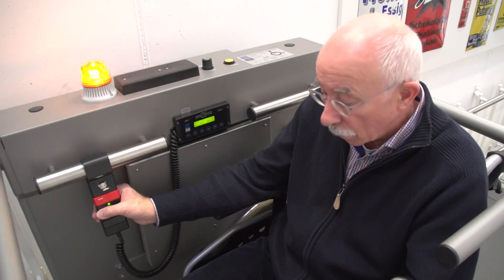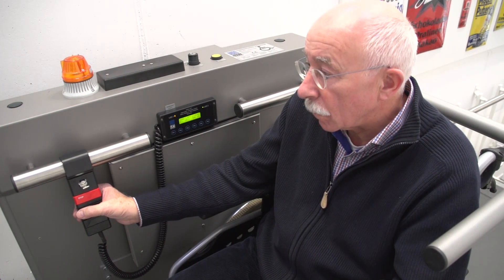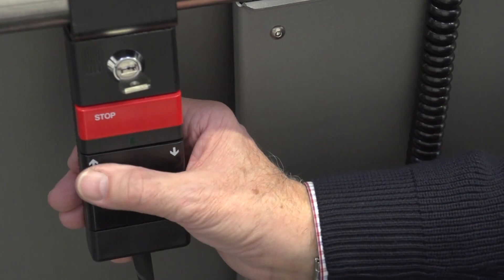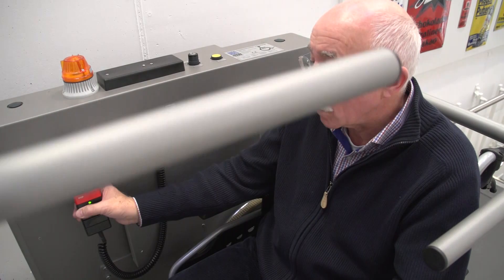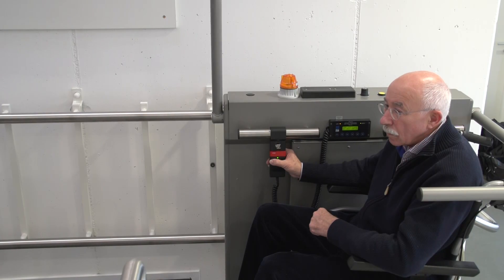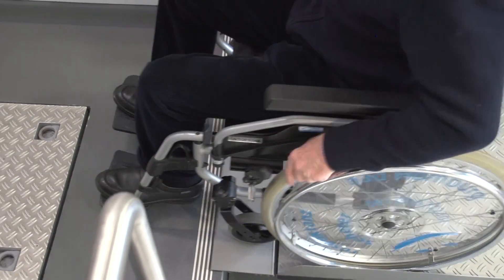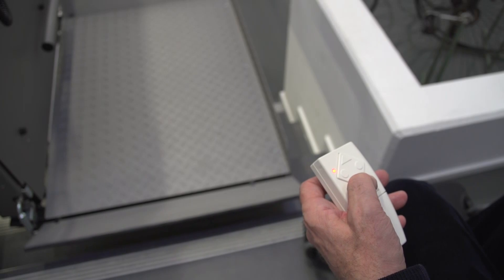If you want to get off at an intermediate stop, briefly release the travel direction button during this time, then press it again until the safety bars, access ramps, and platform have opened automatically. Get off the lift as usual and use the remote control to fold it up.